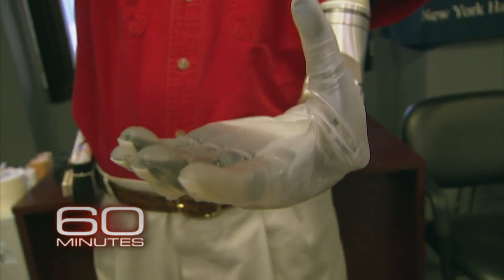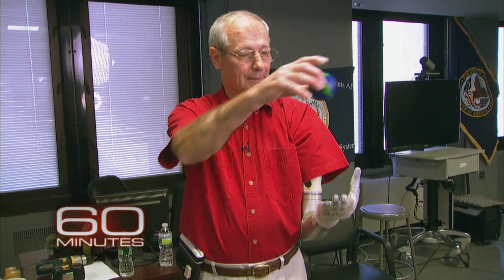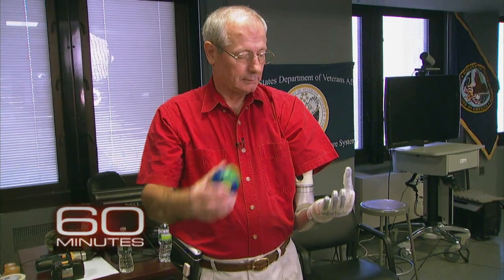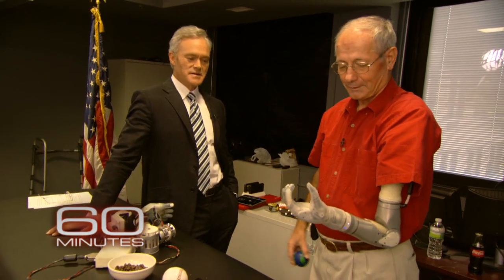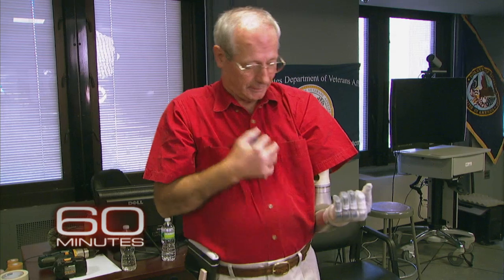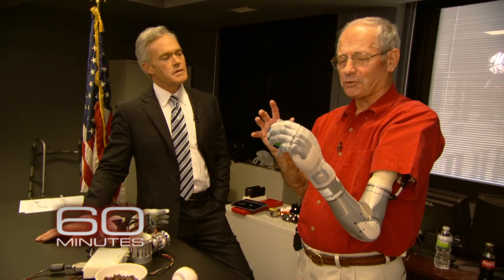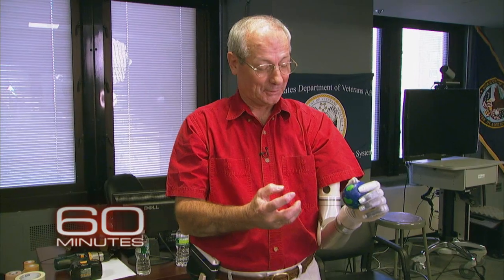I'm going to try and catch the ball. You started this yesterday? Yesterday is the first time I did this. Because of the dexterity of the hand, which is so much greater than before, I wanted to try and see what I could do. It may seem tedious to you, but it's a lot of fun for me. You haven't caught anything in your left hand in 44 years. That's great — it's the thrill of the catch. Now, that is such a wonderful feeling. You cannot imagine what that's like to catch that ball with my left hand.